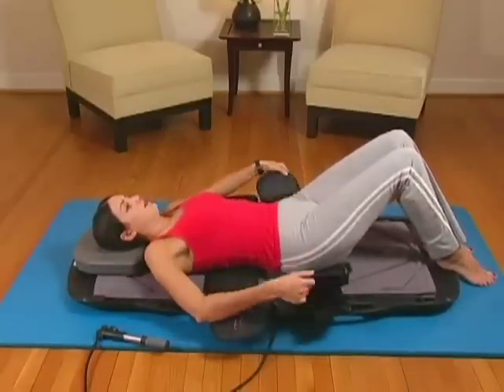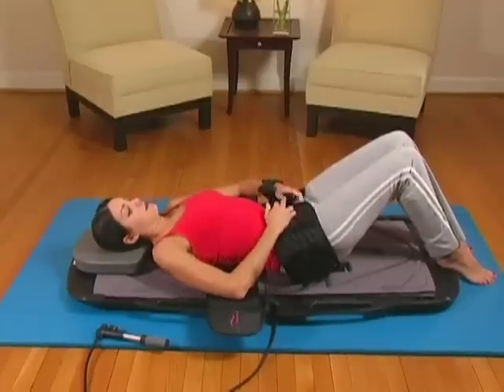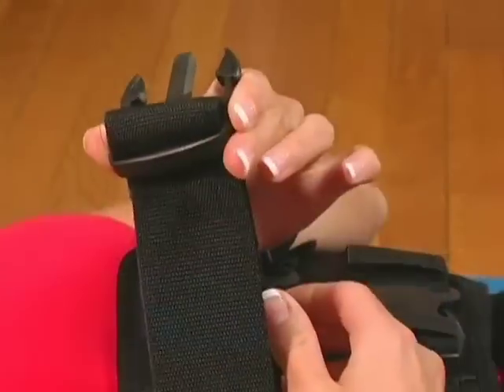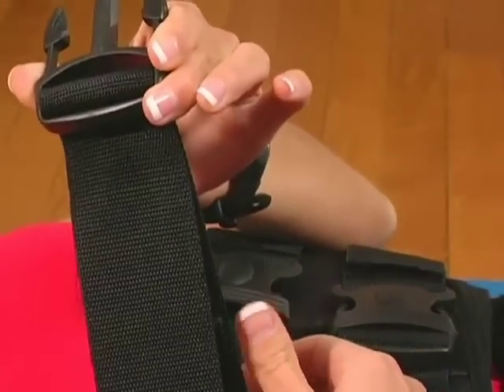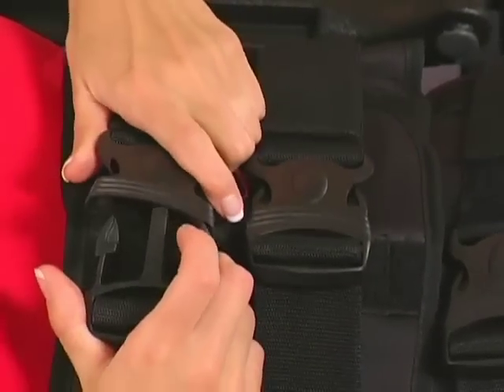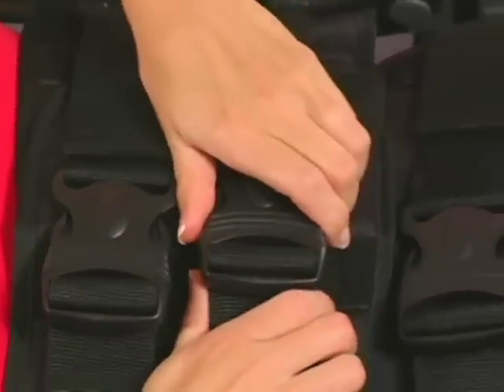Remember that your ComfortTrack lumbar device works best on form-fitting athletic clothing or the bare skin of your midsection. Tighten the buckles as needed by tugging on the buckle straps. Note that your health care provider should have already adjusted the straps to their proper position. The only adjustment you may need to make is a final tightening of the buckle.